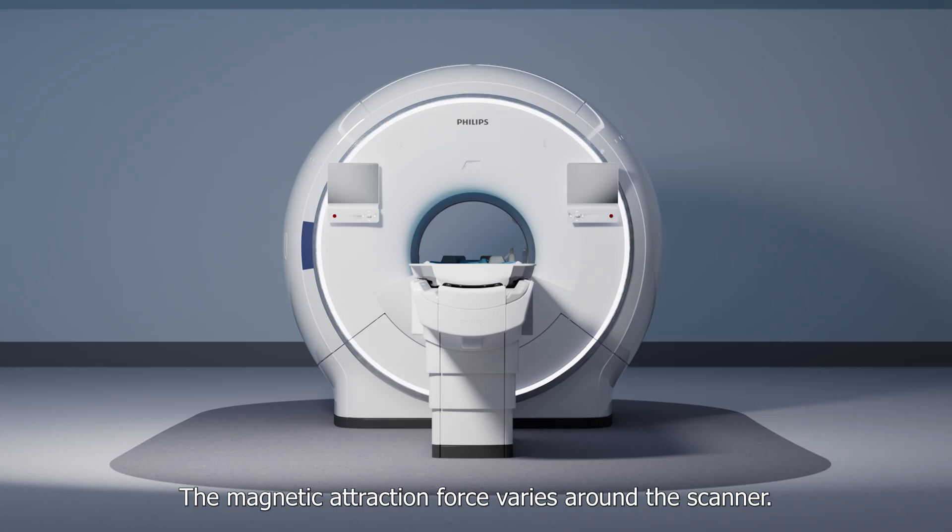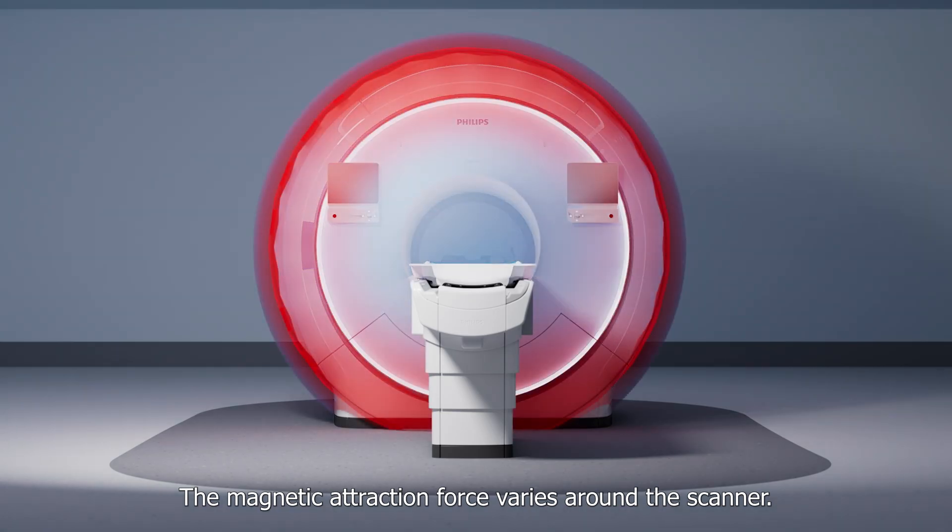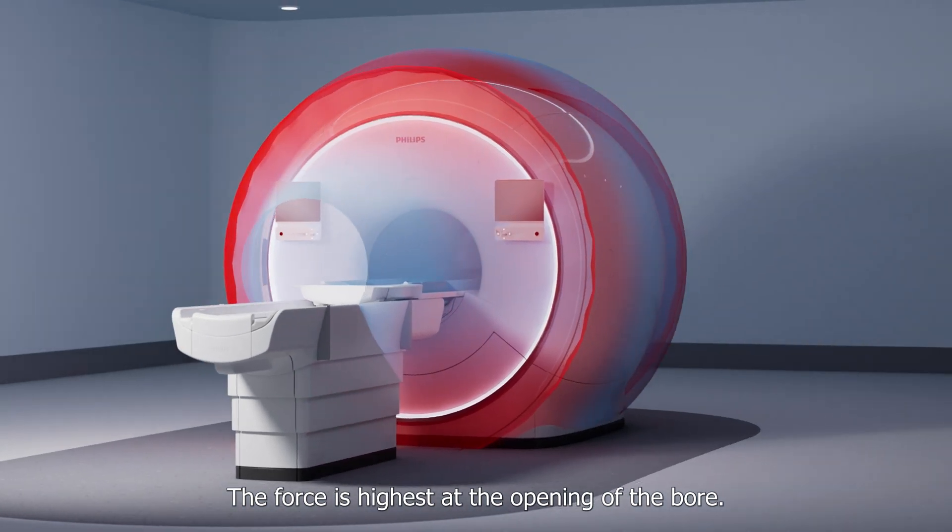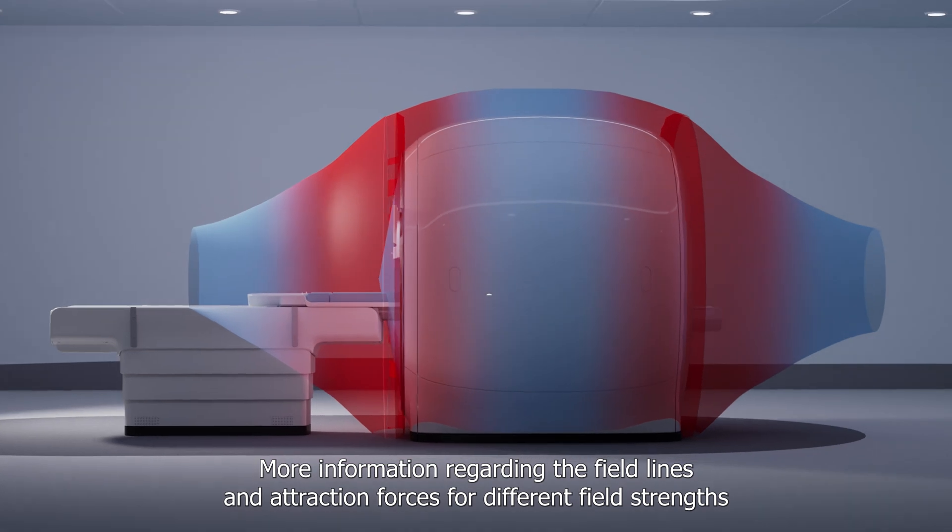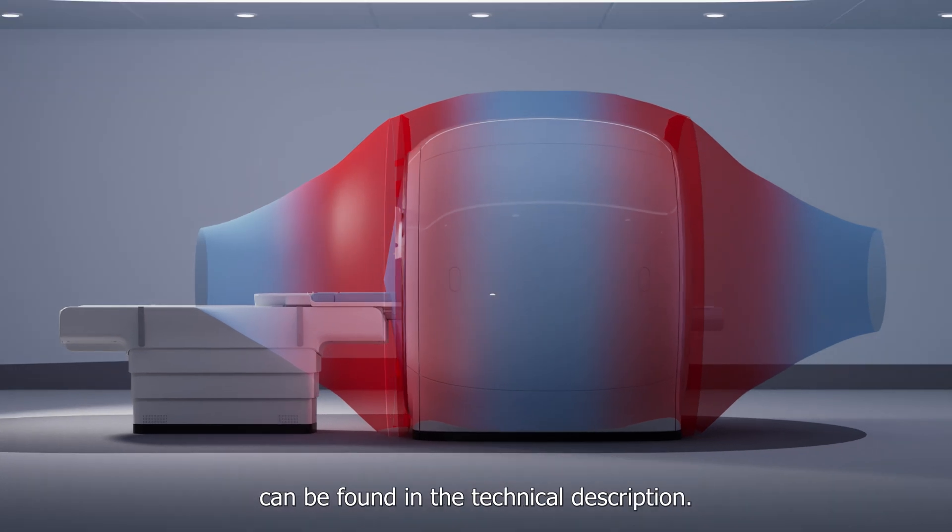The magnetic attraction force varies around the scanner. The force is highest at the opening of the bore. More information regarding the field lines and attraction forces for different field strengths can be found in the technical description.